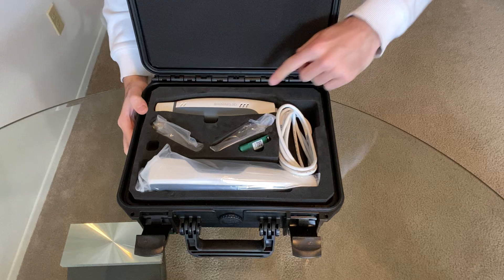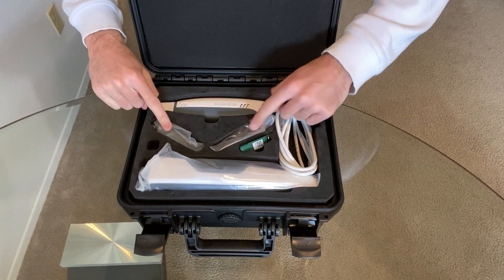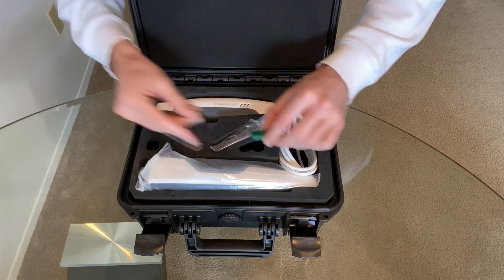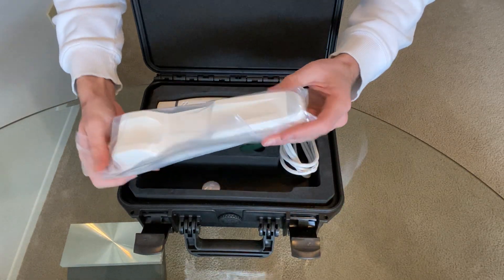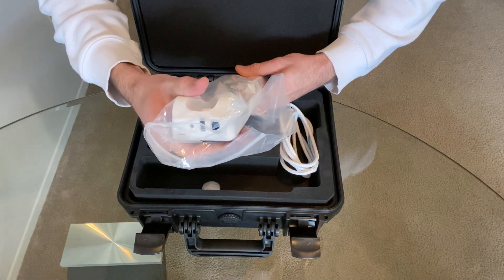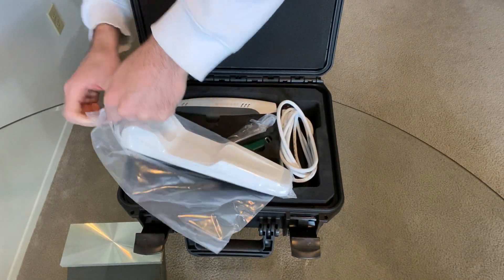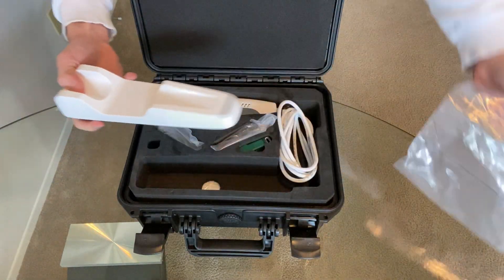You'll see right here, top to bottom: you got the intraoral camera, you got two of the scan tips, you have the USB dongle to plug in and download, and then you also have the intraoral scanner cradle. Everything's gonna be plugged in and your scanner is gonna be positioned right there. I'm gonna go ahead and take everything out so you can see exactly what you get when this shows up in the mail.